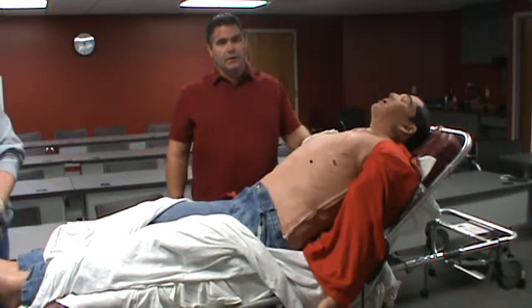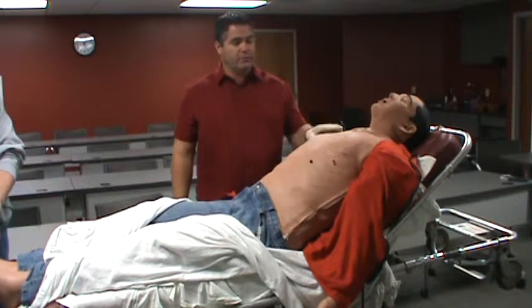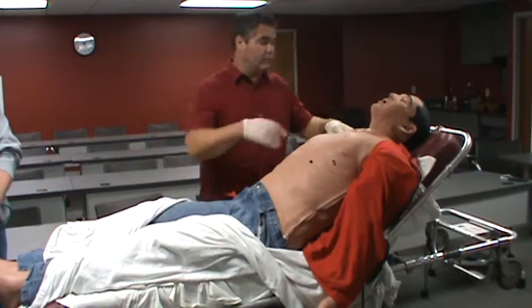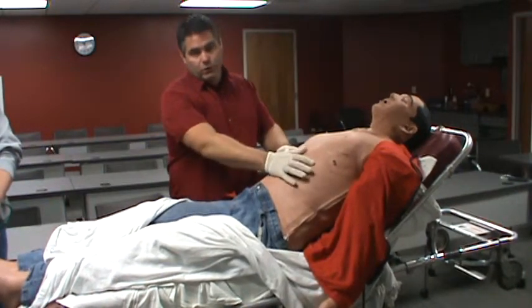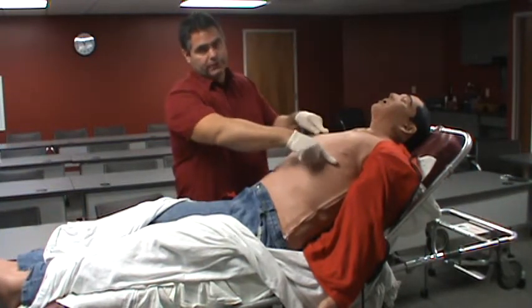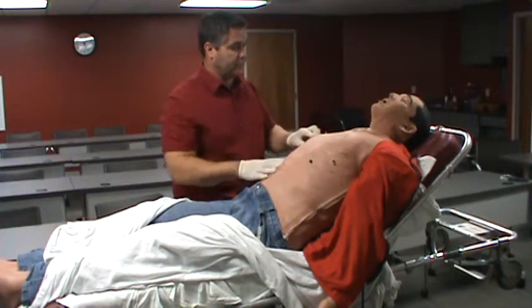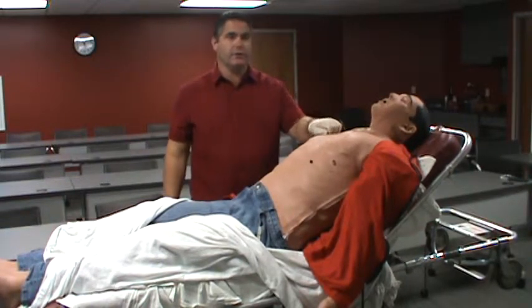You can listen to heart sounds — probably a little above where we're at for pre-hospital, but for nursing you may be listening to heart sounds. We can put a four-lead ECG on him. You'll see underneath the skin there are four small posts and you can hook your four-lead up to him. He can also be paced and defibrillated off of the large two posts that are sticking out pretty prominently. We have cables that will adapt to just about any monitor we're going to be using in training.